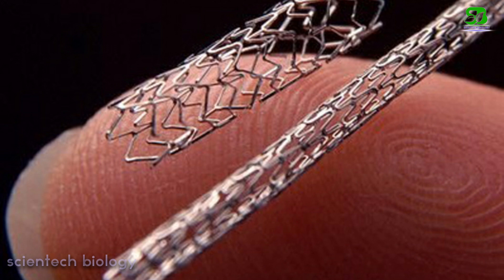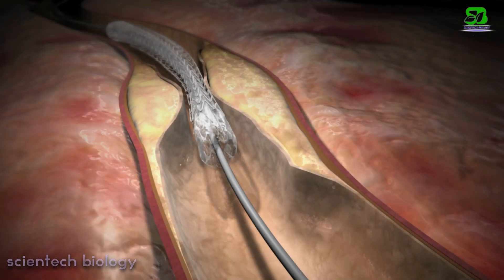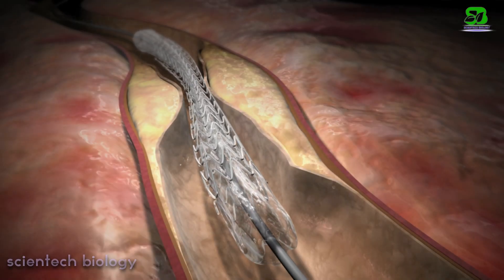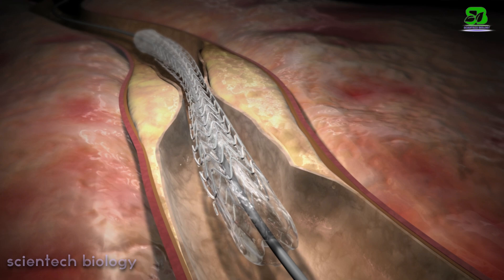There are two types of stents. Bare metal stents: these stents are expanded during the angioplasty and act as a column which keeps the once clogged blood vessels continuously open.